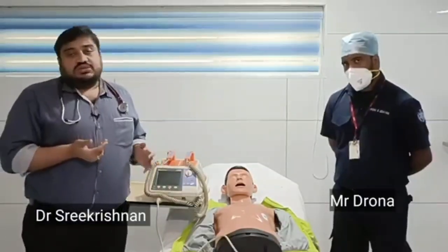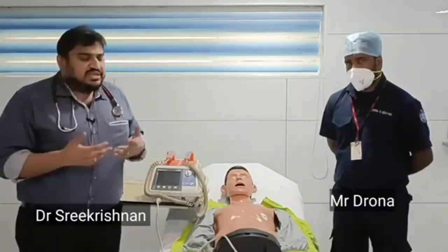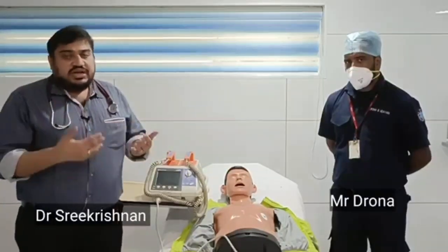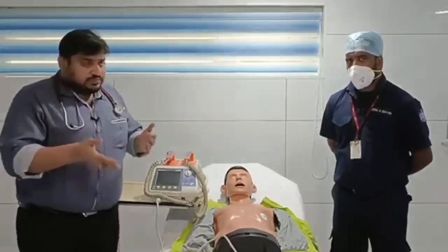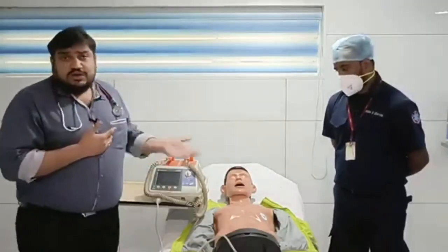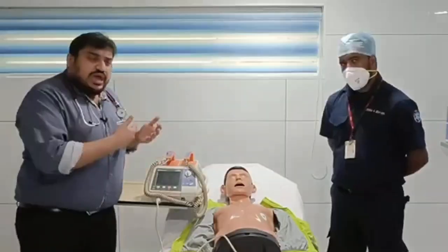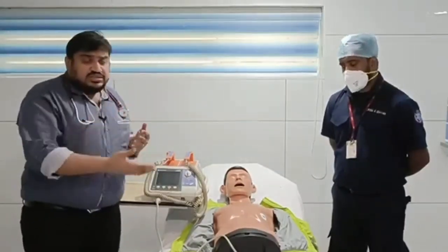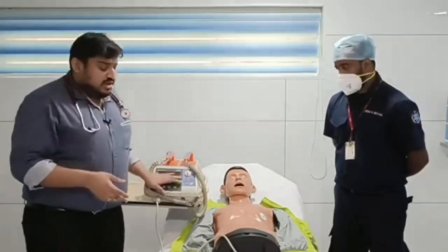The next thing is something called cardioversion. Cardioversion is for an unstable tachycardia. The patient is not in cardiac arrest, but is having an unstable rhythm, an unstable tachycardia, where you want to bring the heart back to a normal rhythm and decrease the rate. In that scenario also you can use the defibrillator. And finally, when you want to monitor the patient continuously, to see whether the patient is going to develop any arrhythmia, such as atrial fibrillation, you can use a defibrillator.